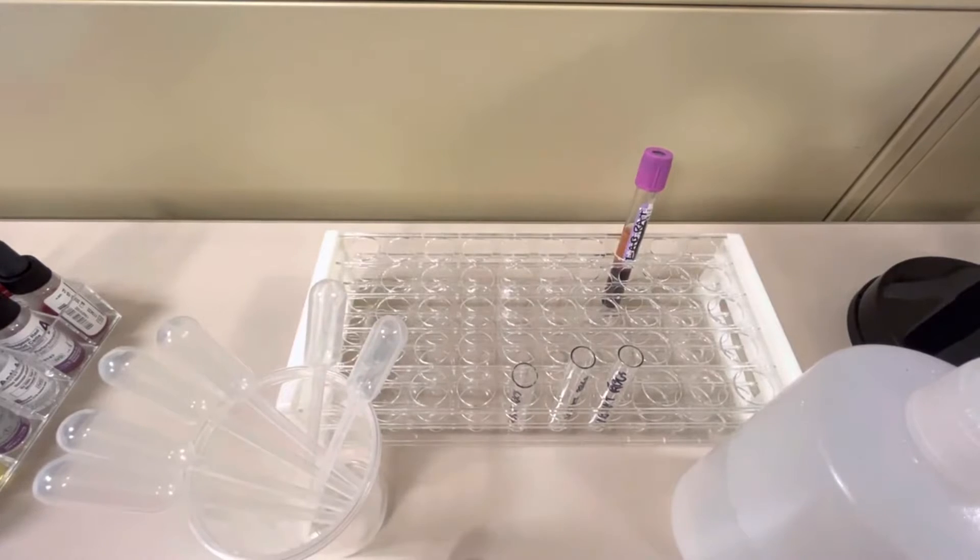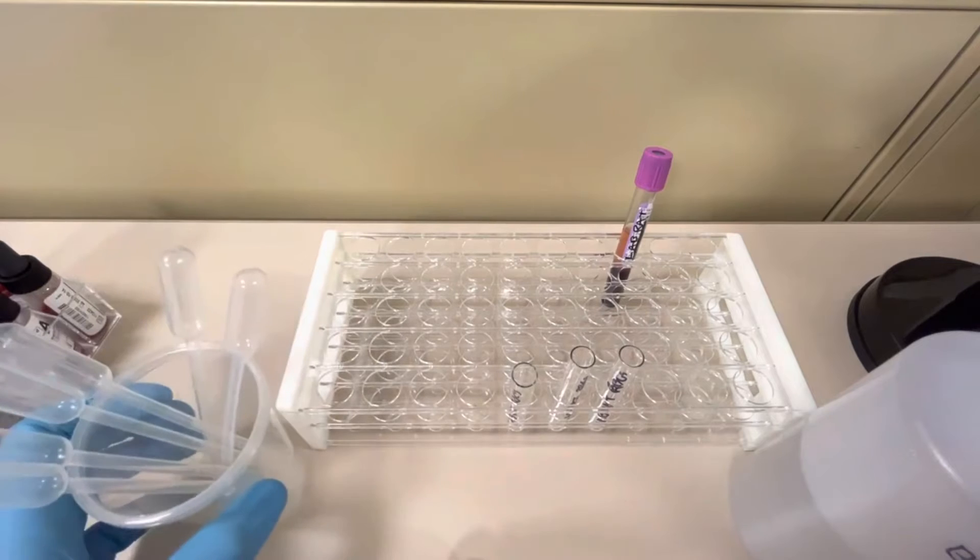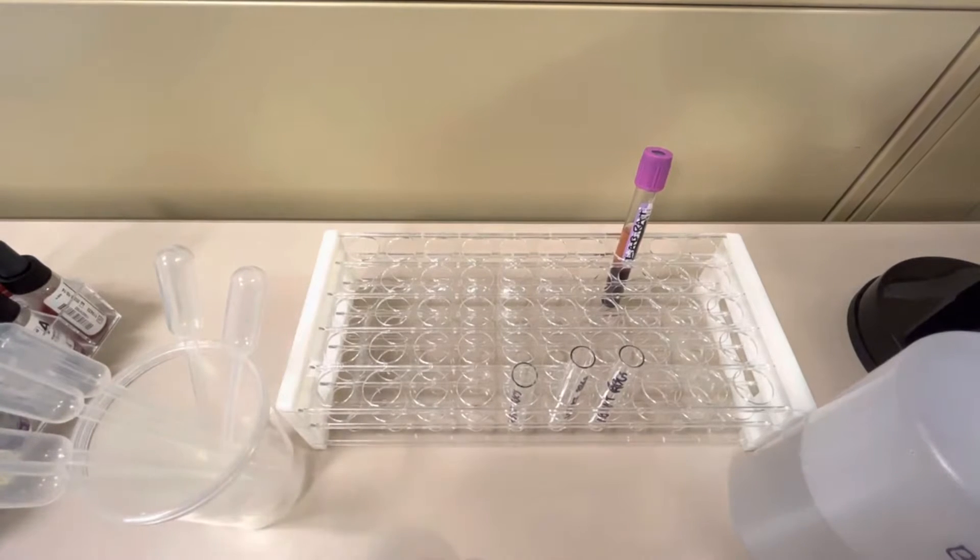In this video I'm going to be showing you how to make a proper red blood cell suspension for everyday blood banking testing. So why do we do this? Red cell suspensions are used in basically everything in blood bank, primarily within the ABO blood typing.